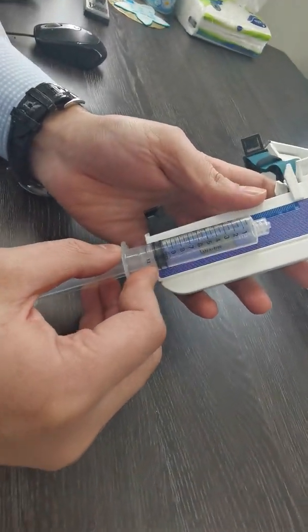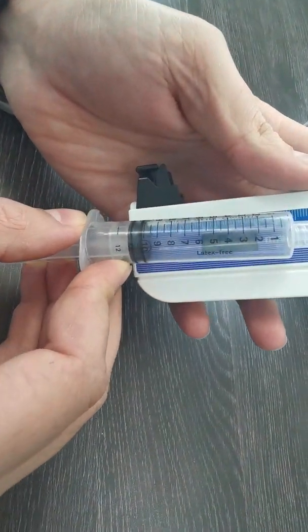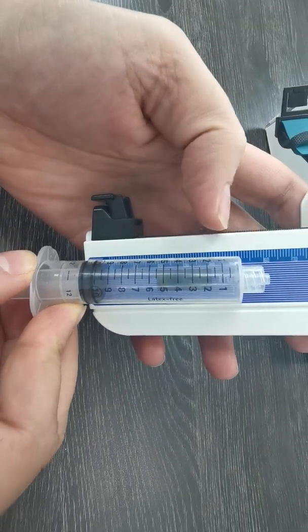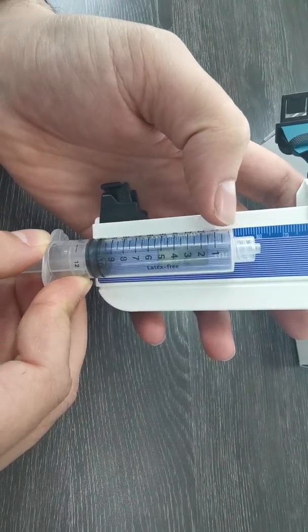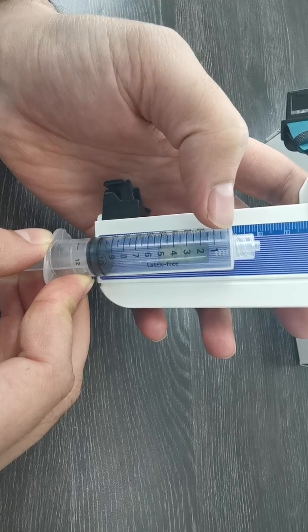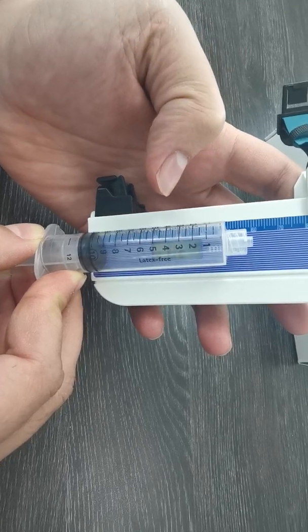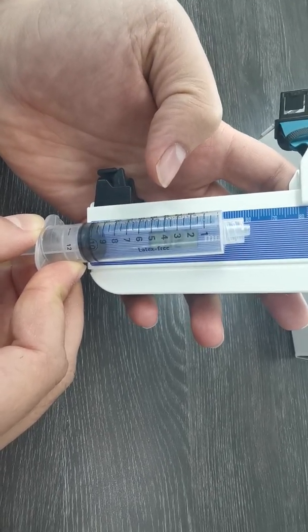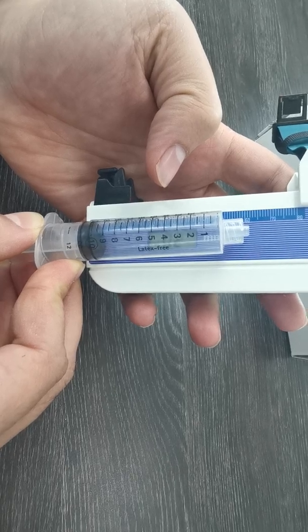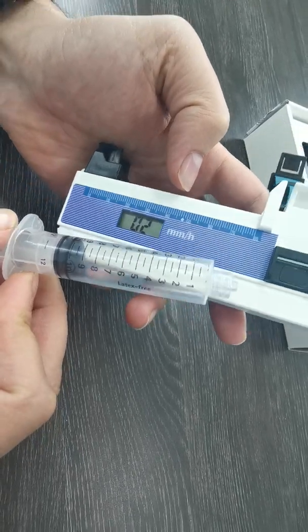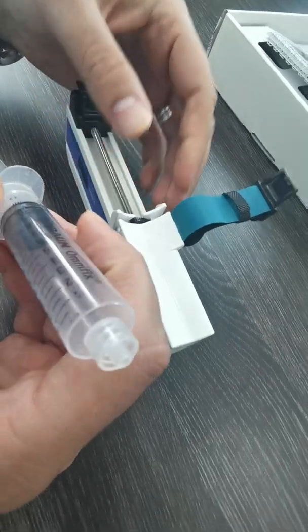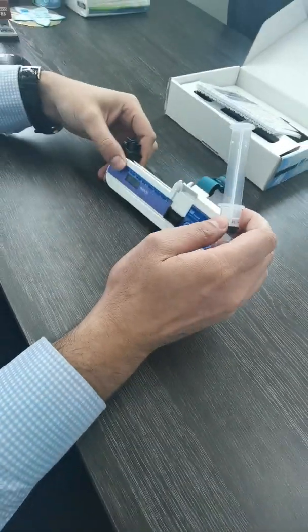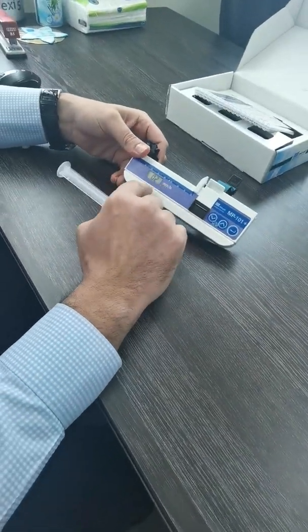We will put the edge of the black rubber at the zero and we will see here how much at the tip of the syringe. So it is 50. So 10 cc will be 50 millimeter per hour.